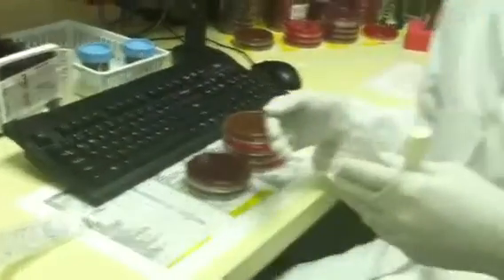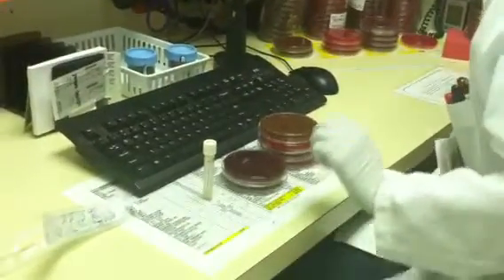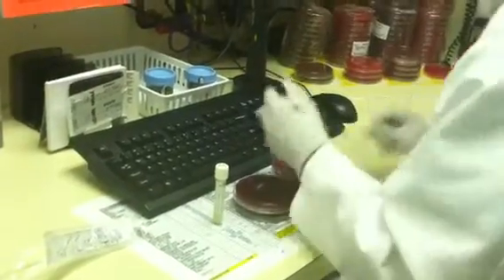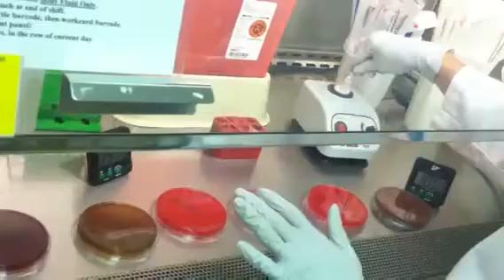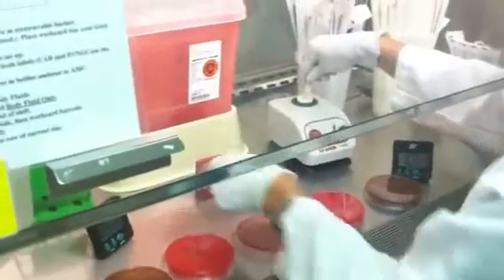You're going to follow your worklist like you normally would for your plates, and if you need a gram stain. We are going to put a gram stain and do aerobes and anaerobes off of this e-swab. I'm going to place my plates, the sample, and the gram stain under the hood and lay my plates out. You want to make sure that you vortex the e-swab. All e-swabs get vortexed, and then you use the liquid in the media opposed to the swab for culture testing.